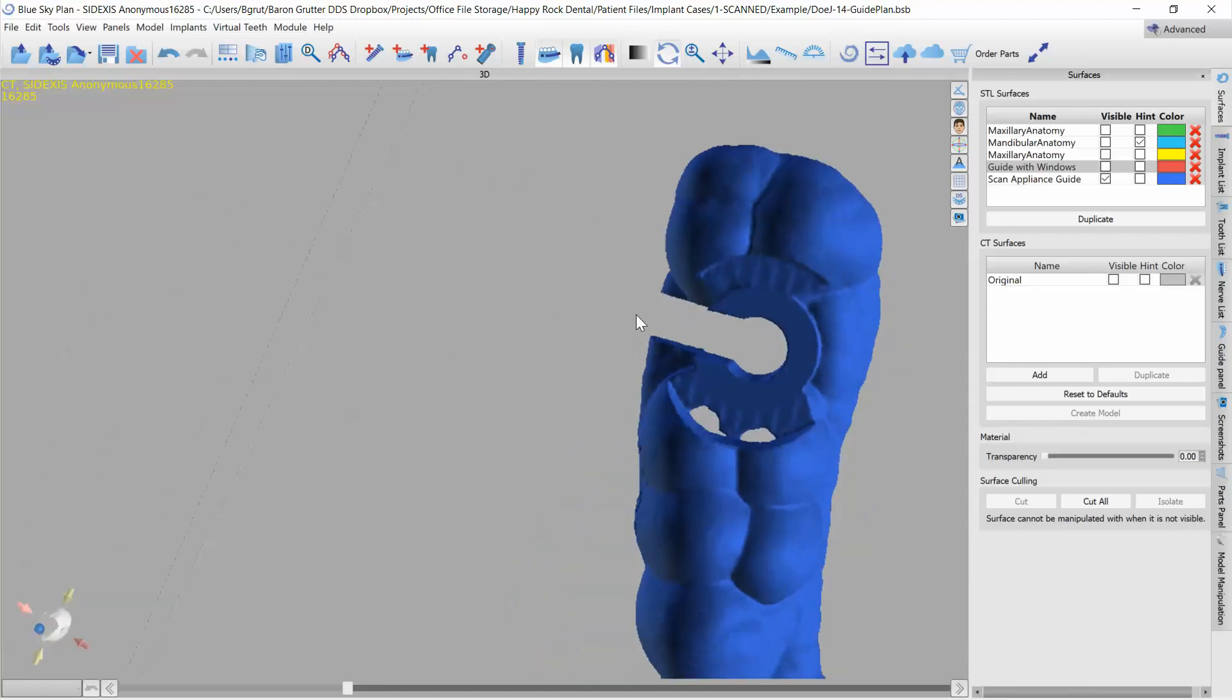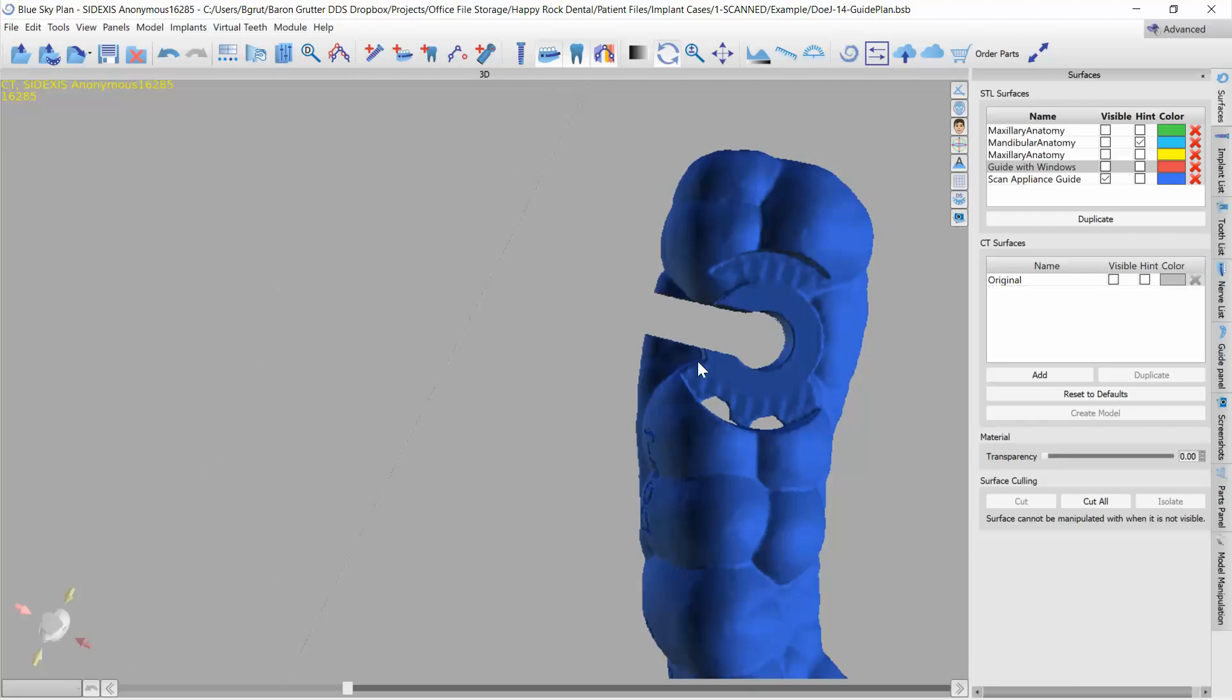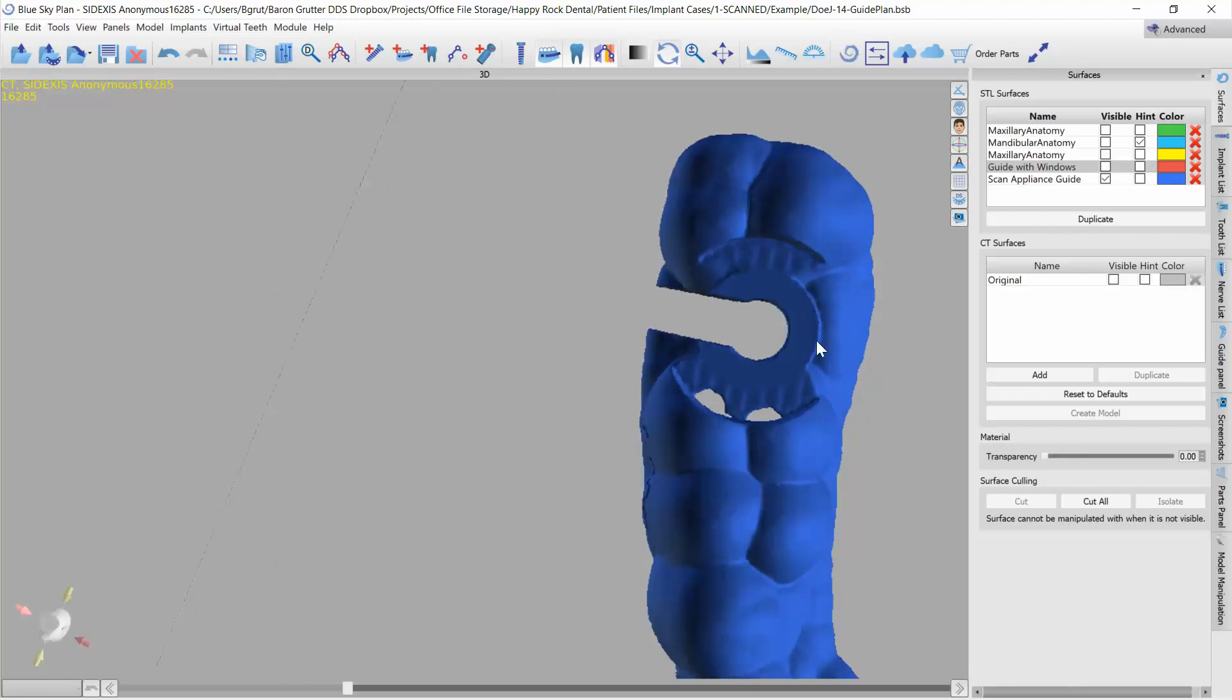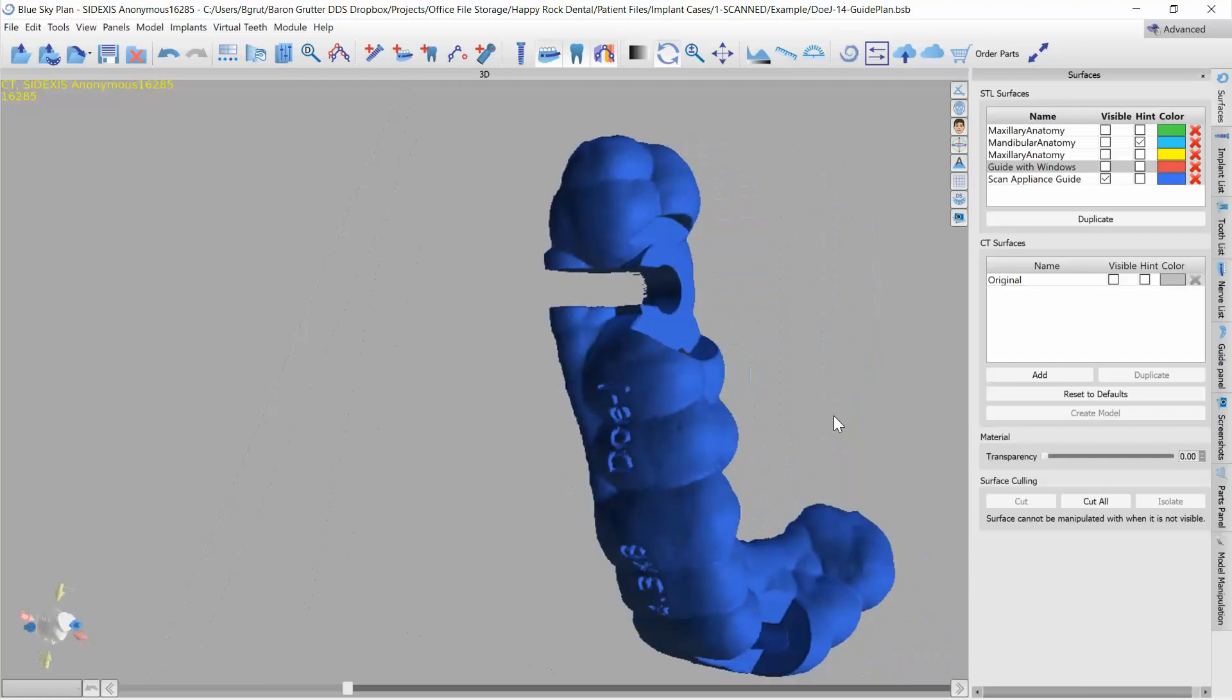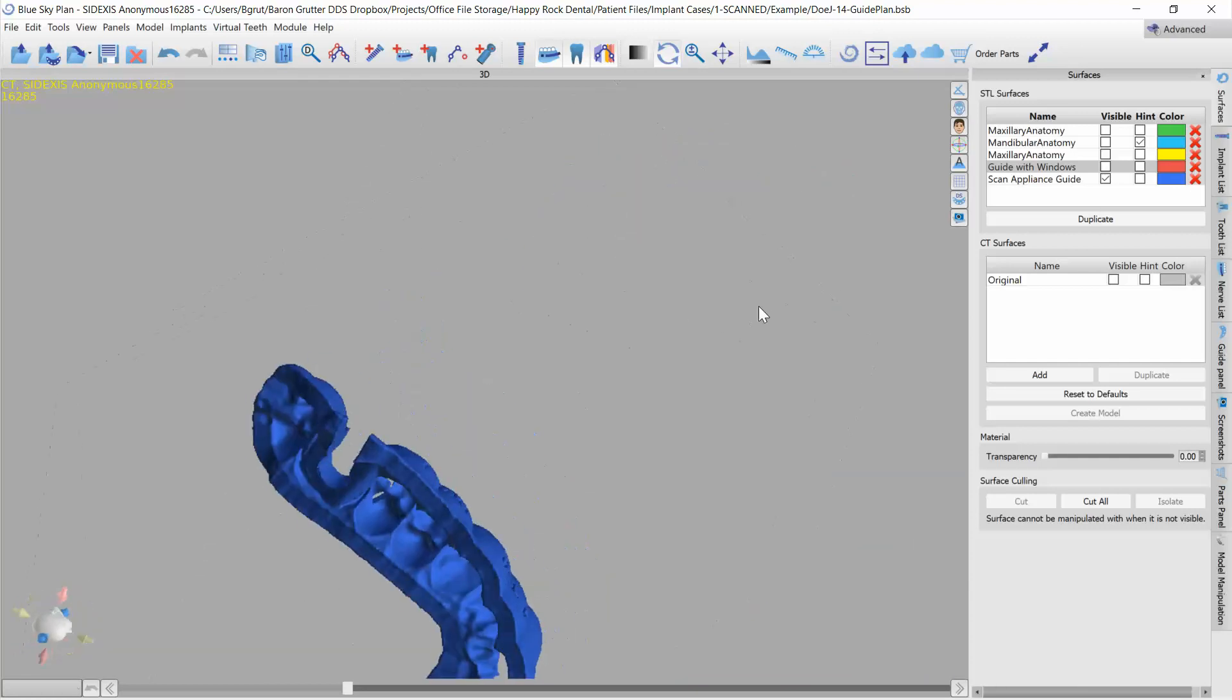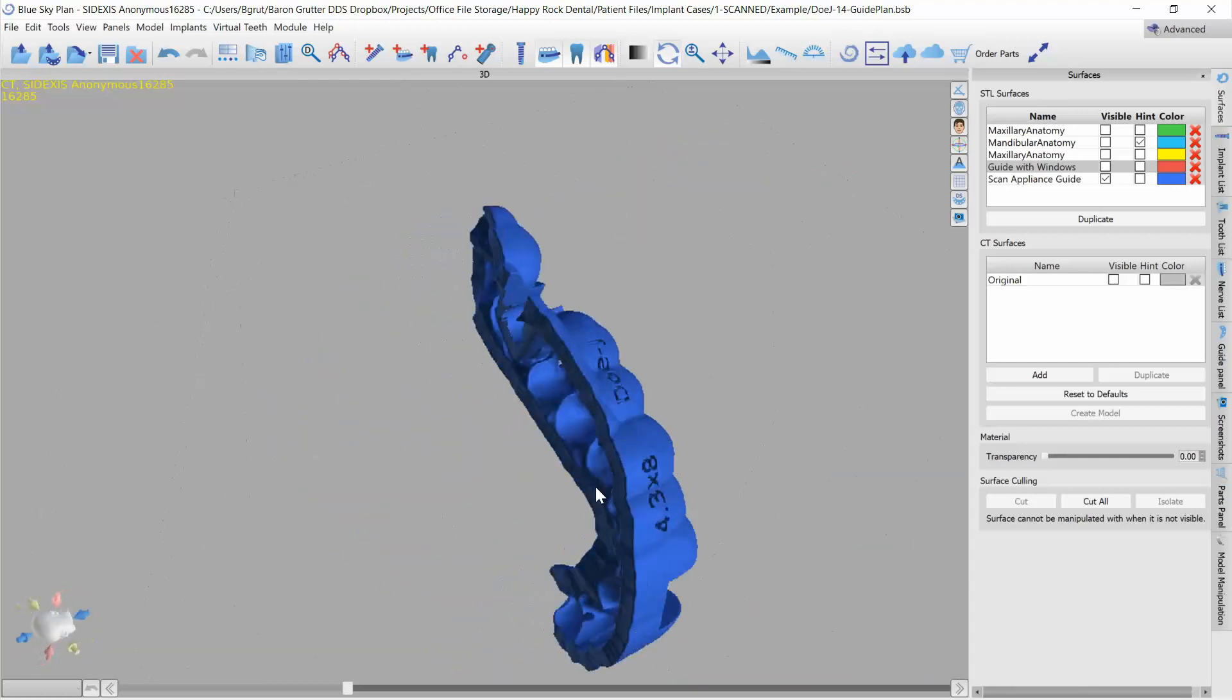And slide my drills in and still have this much of it. You know, be aware you're going to have some flex potential so you want to have a nice extension out here to make sure it's really thick and fairly rigid. But if you're understanding of those limitations and you still want to do this, that is the best way I can find to do it.